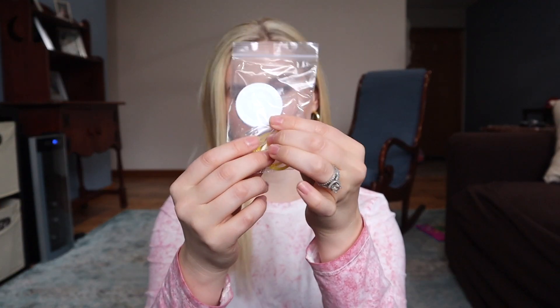With all my wearable pumps, I have to pump a little bit longer than I do with my regular plug-in pump, so I always add up to an extra five minutes when wearing a wearable pump. They just seem to need a little bit longer to empty you. I've had mine a few weeks and I haven't had any issues. The manual promises 500 hours at least of pumping life. It recommends that you replace the washable parts every three to six months, though obviously that probably depends on how often you use them. They include some extra silicone rings and some extra valves — those are probably the two things you need to replace most frequently.